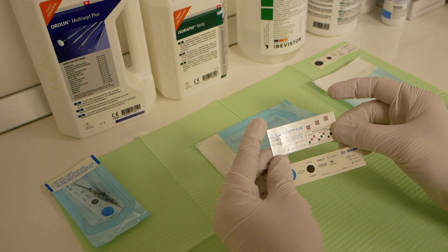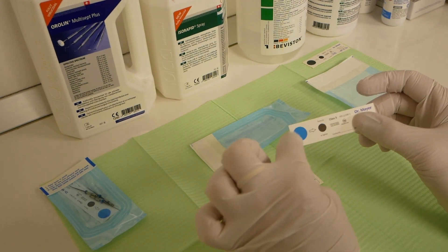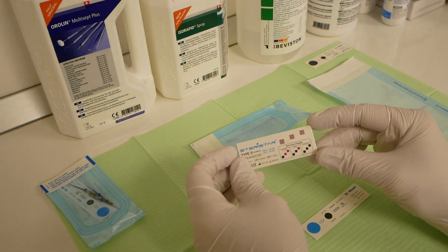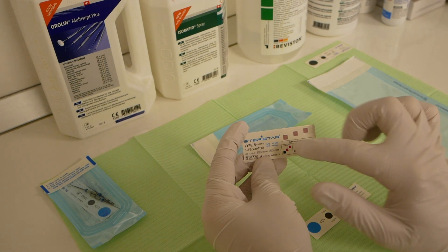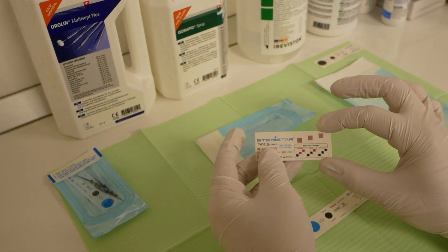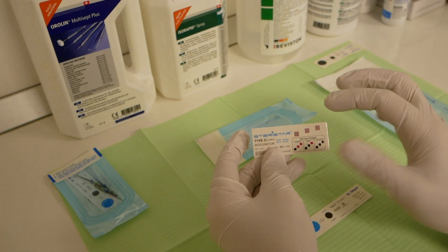There are several types of Class 5 strips. For example, this one has a circular pattern which turns brown from blue in a circular fashion, starting from the middle towards the end. Or this one — all three squares need to change color for optimal sterilization to be achieved.